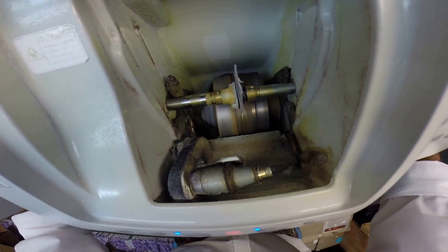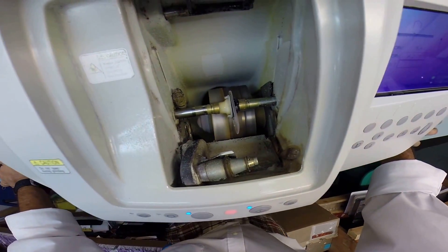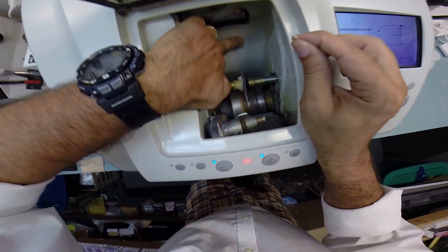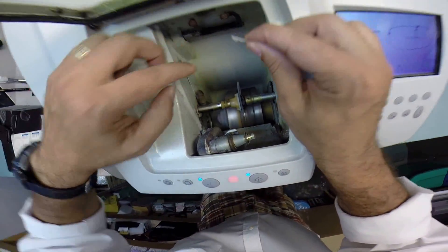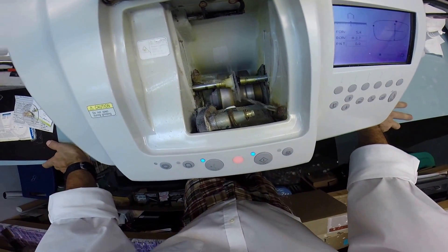Your lens is still finishing the cutting cycle and is now onto the bevel wheel to get the knife-like bevel. There's water running in the background — that's to collect dust. Two water jets are going to kick in at the very end, one in the front and one in the back. Essentially, it's going to wash away optical debris — which is optical sawdust.